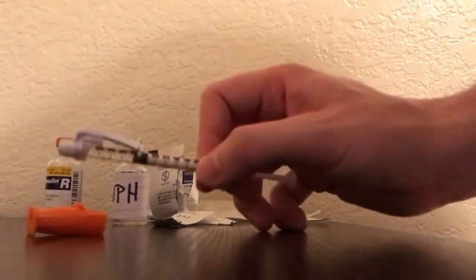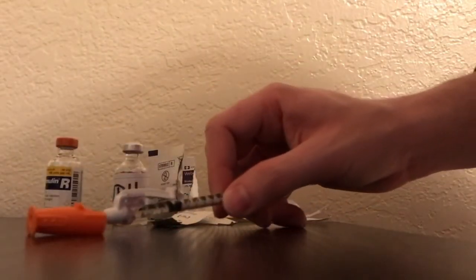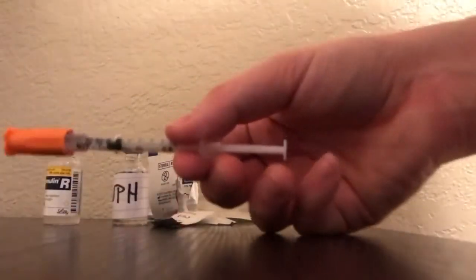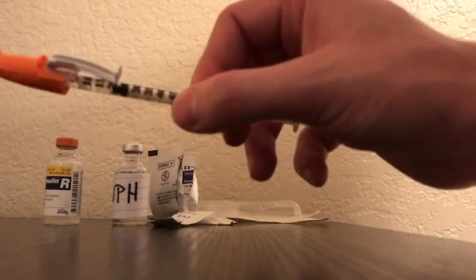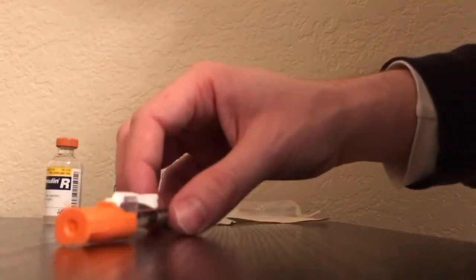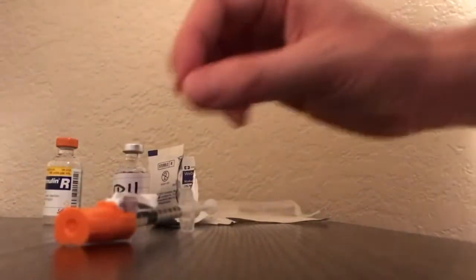Here's important: to recap it, make sure you have a firm steady grip and place it in, then cap it on. You don't want to poke yourself—no needle stick injury. Label everything and you're good to go. Go administer your medications.